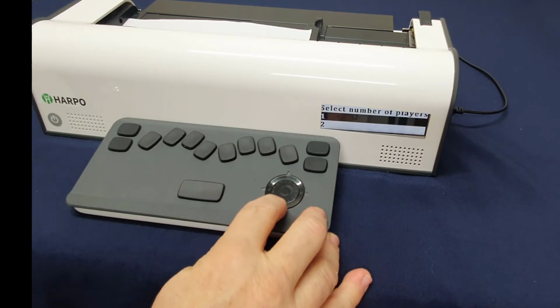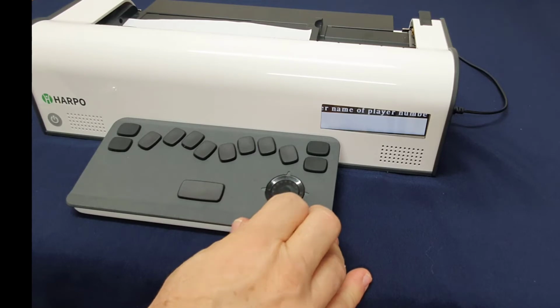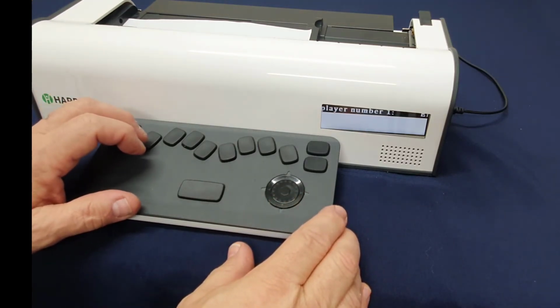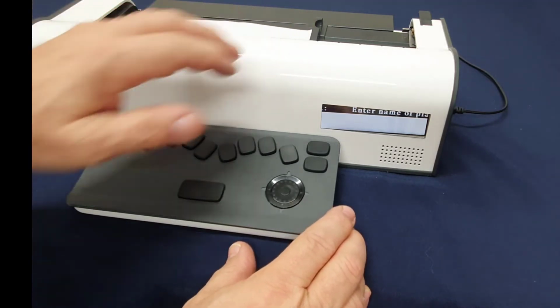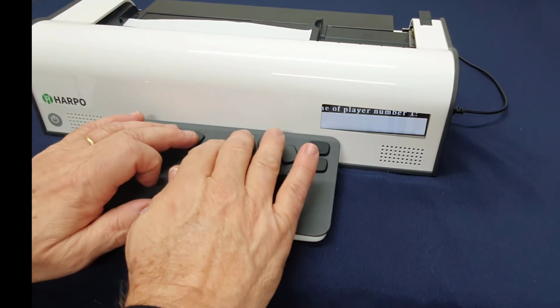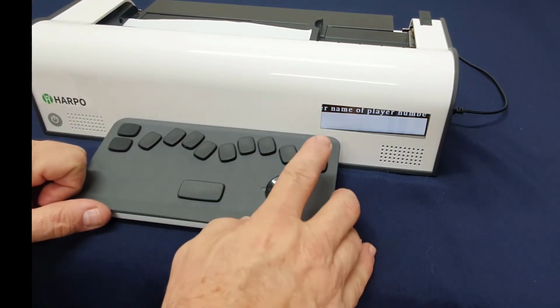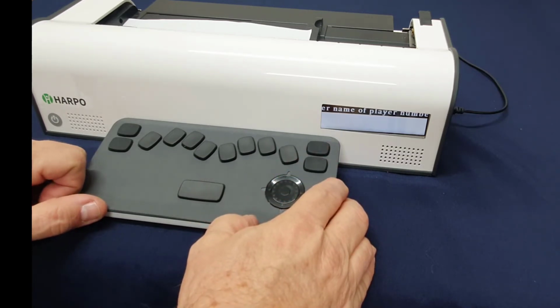So I'm going to go down to 1, 2. 2. Select that. Enter name of player number 1 and confirm with enter key. Before continuing, check that paper is in the Mountbatten. Alright, well I think that's all in place, so let's go for it. So this is the name of the blind player. So let's say they're Tom, and he's going to type in T-O-M, and then he's going to press enter. Hi Tom. Enter name of player number 2 and confirm with enter key.